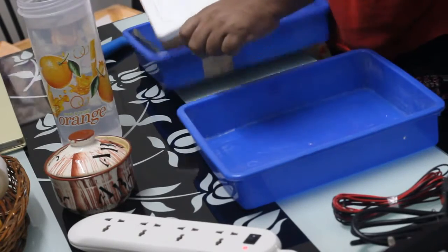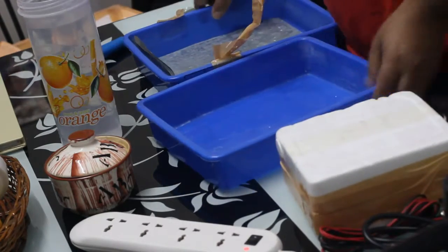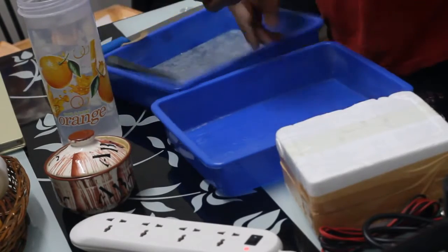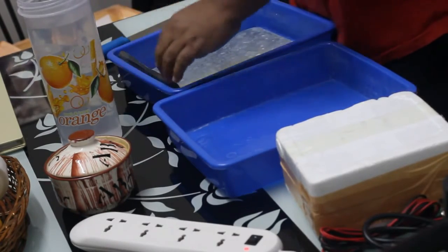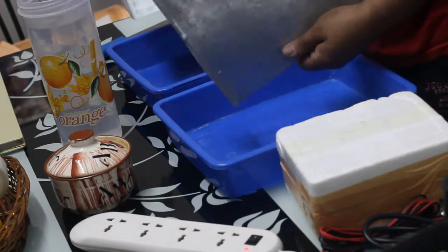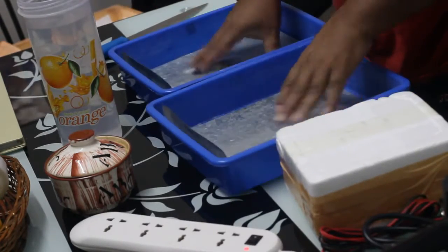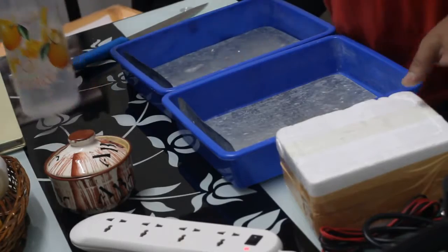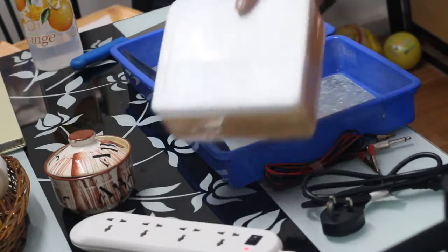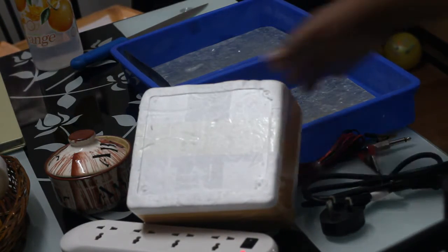And then the iontophoresis device which looks like this. So let us open this package. You can remove the trays if they are attached. Then with the iontophoresis device, you will get steel sheets, two of them. There is no extra cost for the tray, sheets, alligator clips, or power cord. This is all included when you purchase the iontophoresis device.